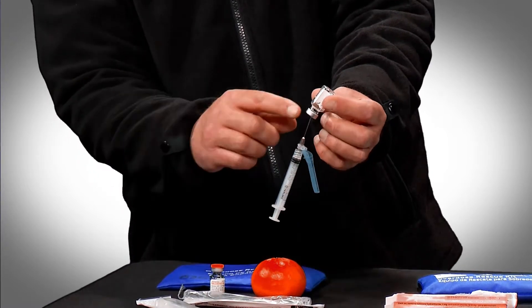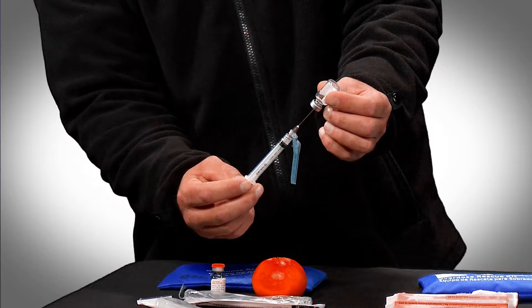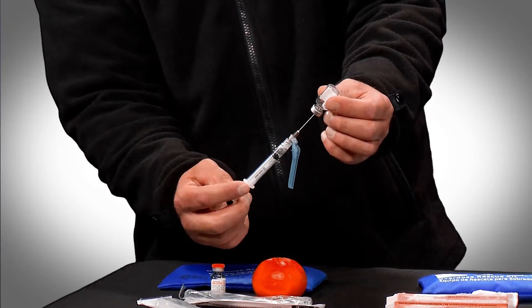Don't go all the way up. You want to make sure the tip of the syringe is in the liquid, and then draw the entire contents of that vial into this syringe.